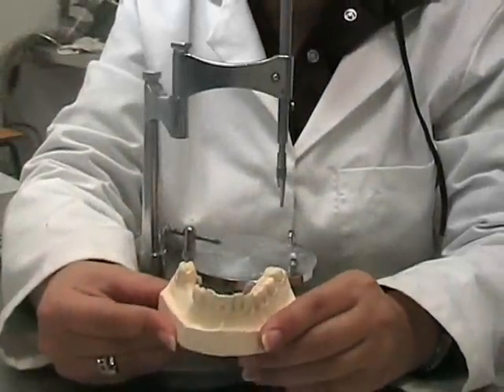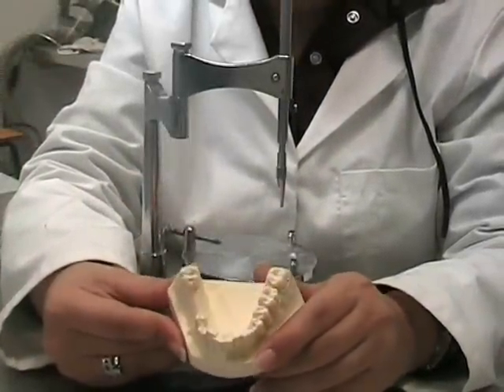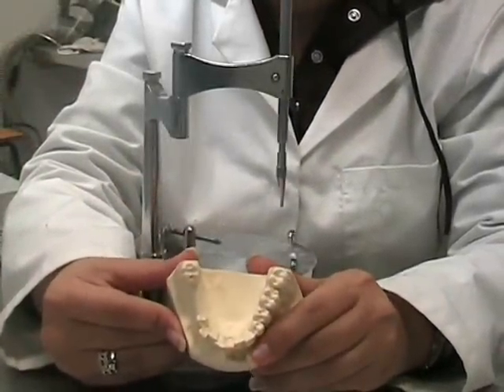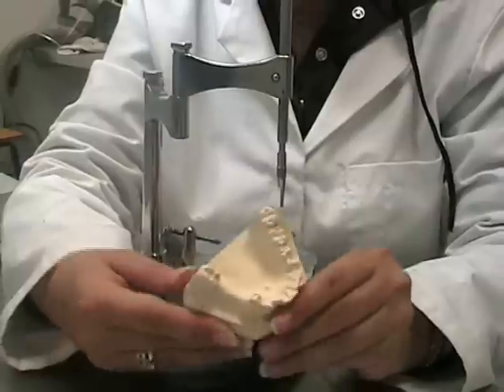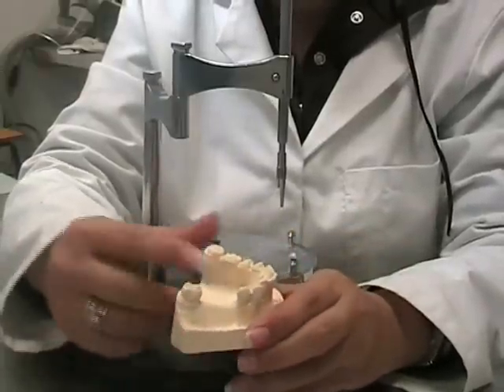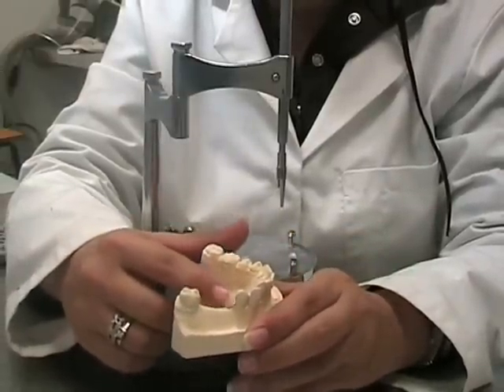This is called a cast and it is a representation of a patient's mouth. As you can see, the patient is missing two teeth in the back region.